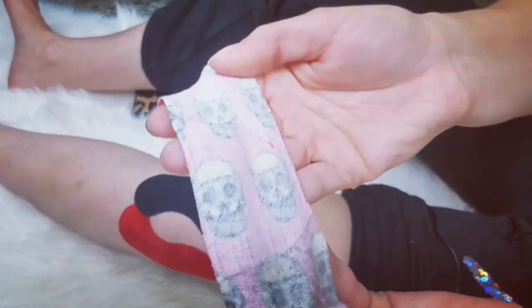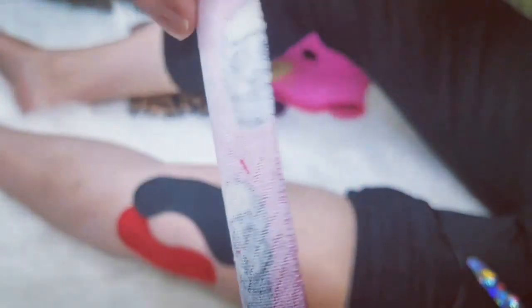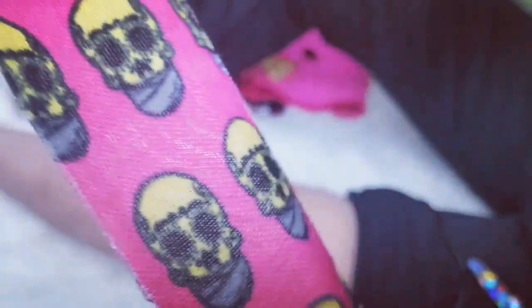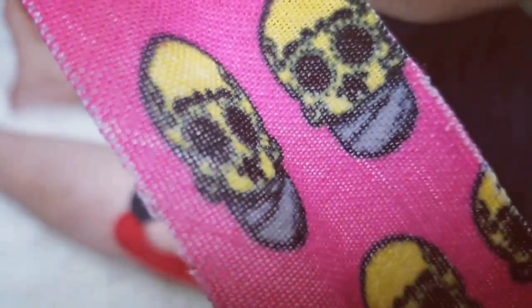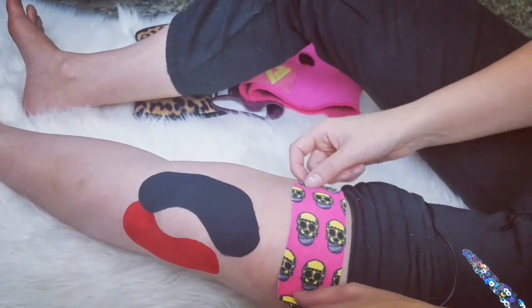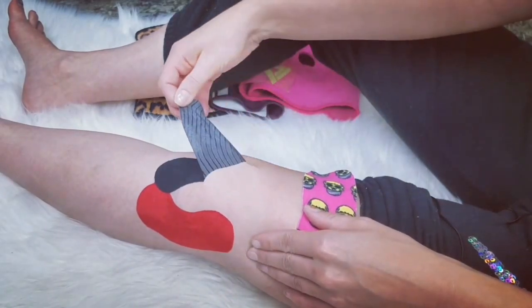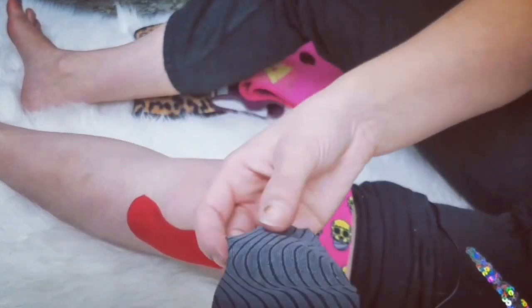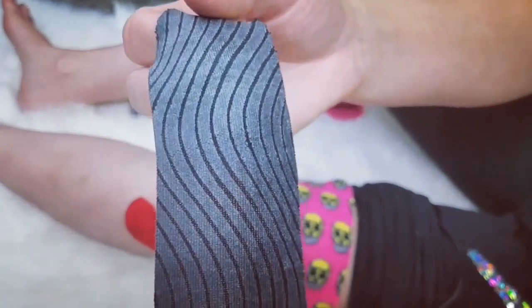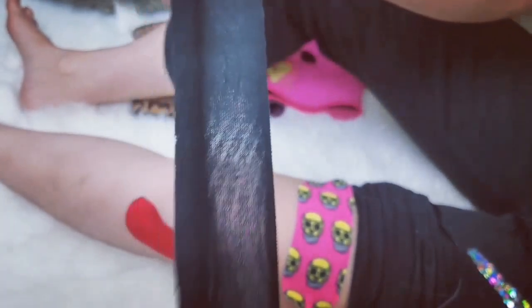We're going to take a look at the underside of Voodoo Tape. Voodoo Tape has the grooved adhesive — you can see — and here's that pretty other side, and it's menthol-infused. Definitely love this stuff. Voodoo Tape does have that stretch, but it's more of a cloth, which I'm not complaining at all because this is the only kinesiology tape I can use. The second one is that copper-infused, and it doesn't stick that well — you can see where it was kind of raised. Underneath, it also has the squiggle lines of adhesive, and this one is very stretchy, but for some reason it doesn't hold its shape very well.